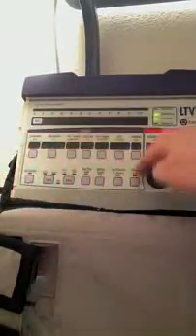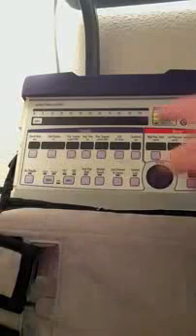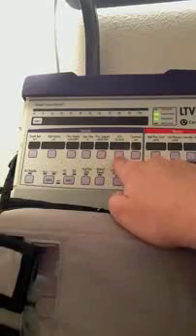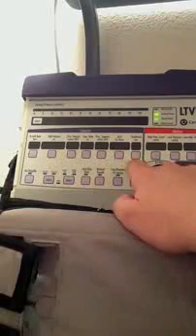This little blue area right here actually corresponds to this little blue area here. This is stuff that we set. So this tells us about the patient here, and these are controls that we set in the ventilator. You can see I have my breath rate, my tidal volume, my pressure control if I do pressure control ventilation, my inspiratory time, my pressure support if I have SIMV. This is the O2% or the FiO2. My sensitivity, this is a flow-based sensitivity, so it'll be in liters per minute. The on-off button. This selects between volume control ventilation and pressure control ventilation.